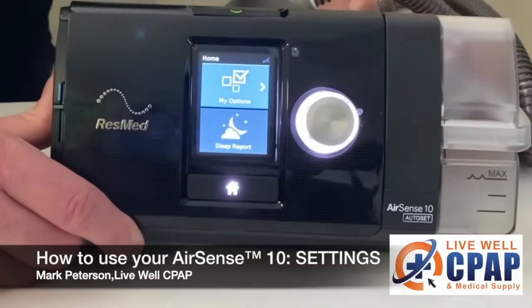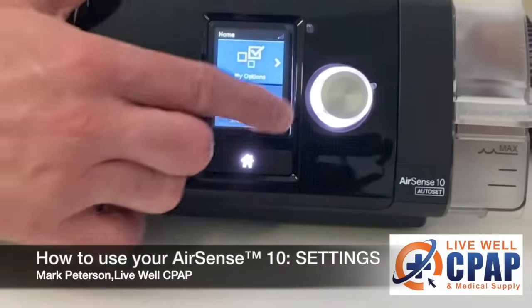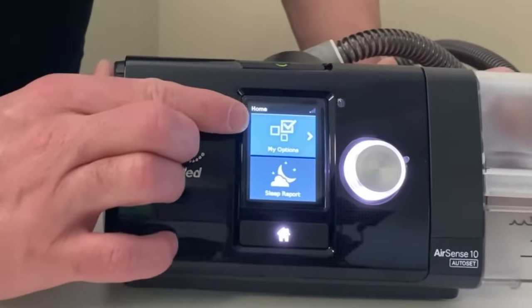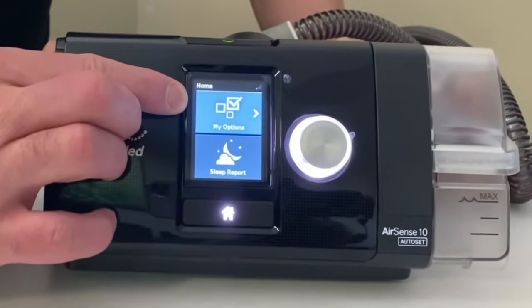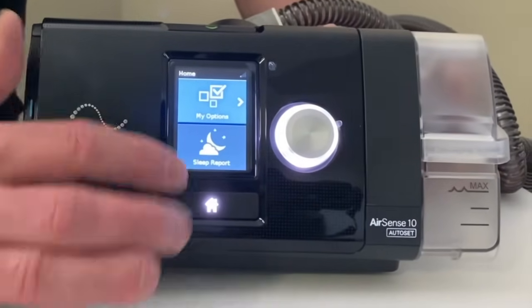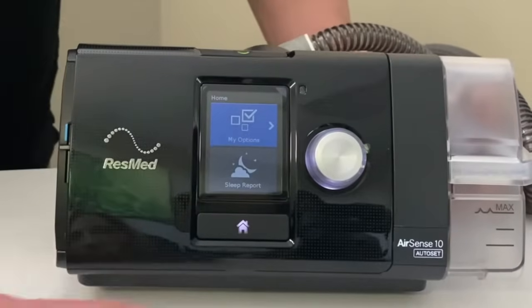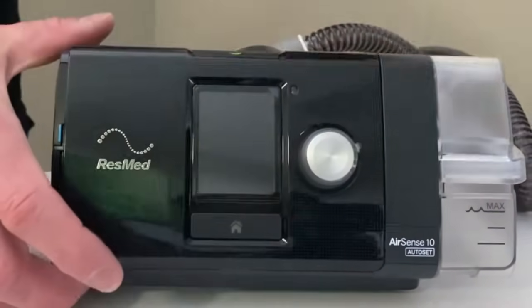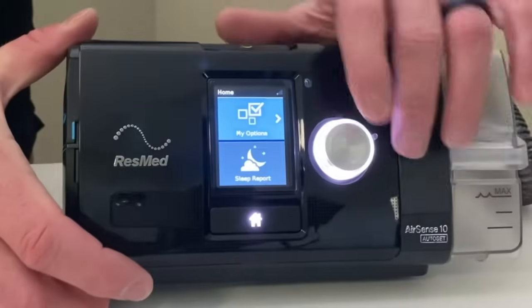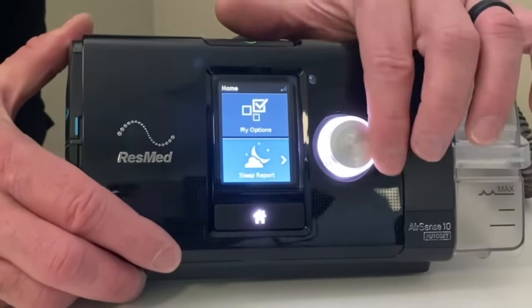Now we're going to talk about the menus on your CPAP. There are a couple of different menus. This is your main screen. You've got two options: My Options and Sleep Report. When you hit stop, your sleep report pulls up automatically. I'm going to wake the machine back up by pressing the button. Let's go into the sleep report first.